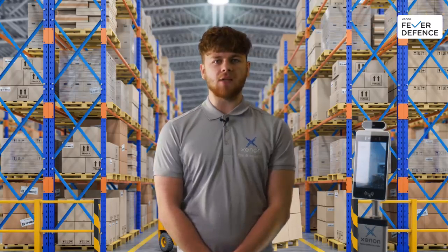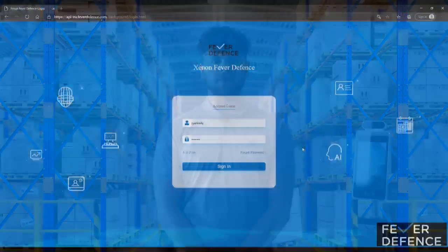By connecting your online portal, this will activate more features such as email notification and being able to view live temperature scans.